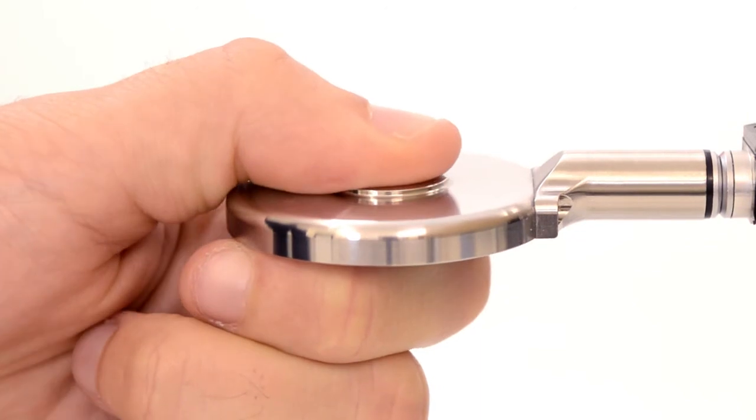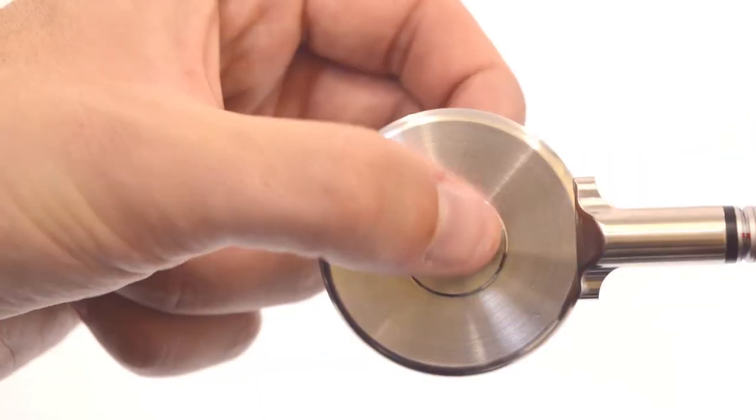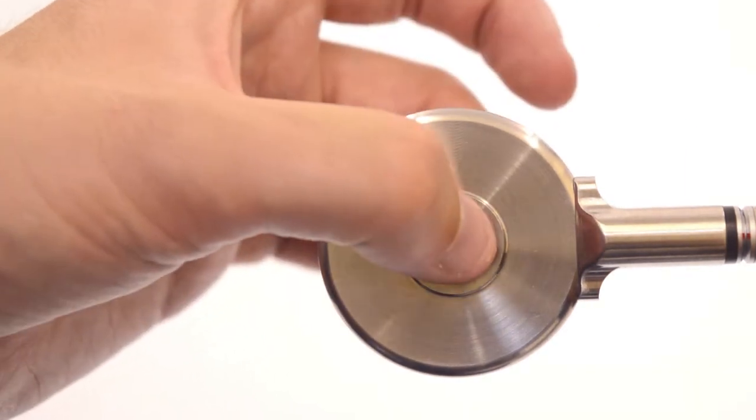It easily accommodates positioning to test standard key pinch, three jaw, tip-to-tip measurements, and thumb-to-digit opposition.